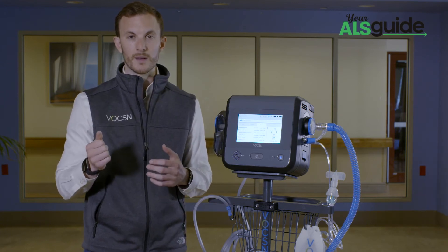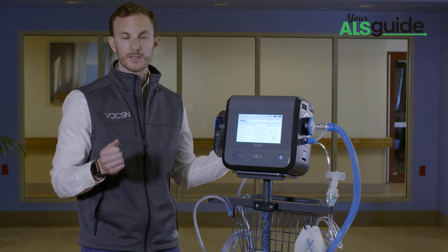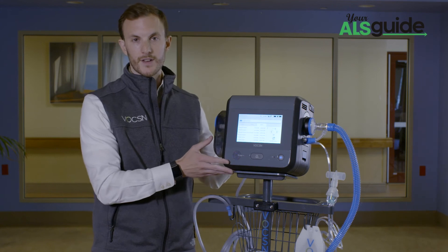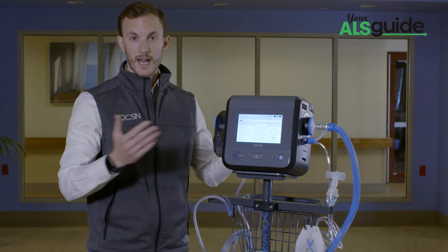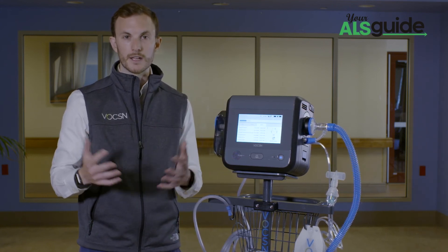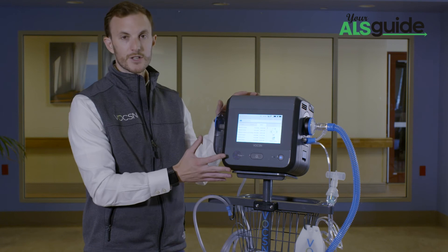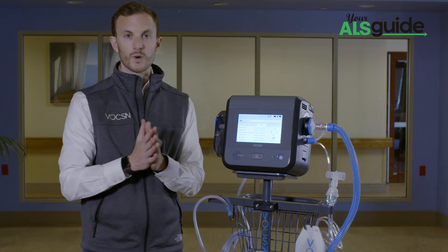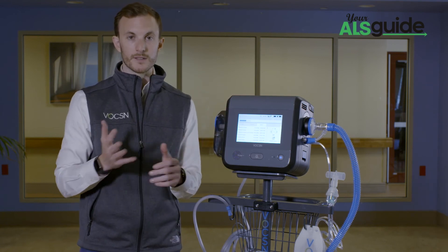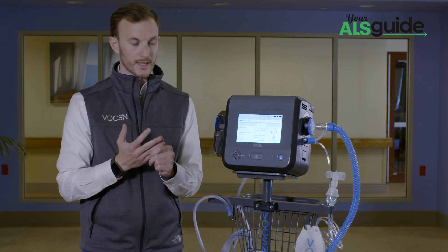I can take them to my doctor's appointment, or my doctor may even be able to remotely access these events ahead of my appointment — or my DME respiratory therapist. It really gives you insight into what's going on across all five therapies, both usage as well as settings.